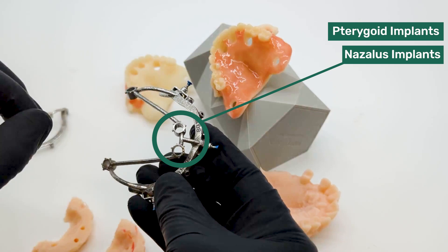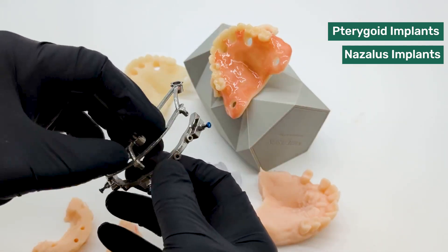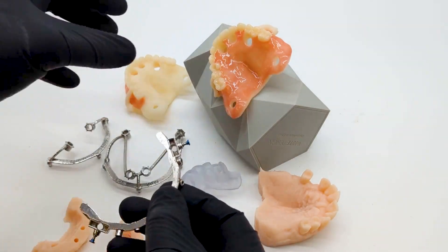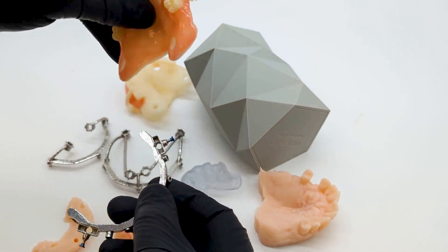Hopefully we get some pictures of this surgery, but this will just show you the breadth of the type of cases that we can complete with Chrome Guided Smile. And then on top of that we have a very unique prosthesis.